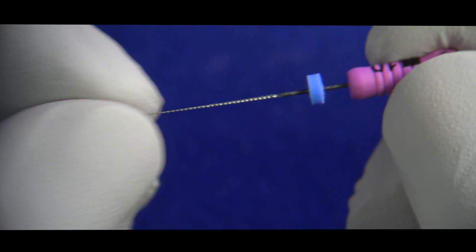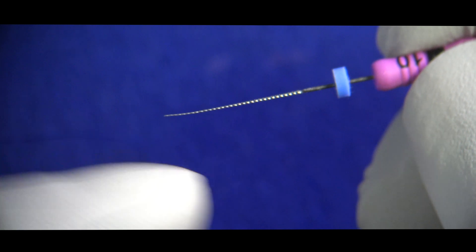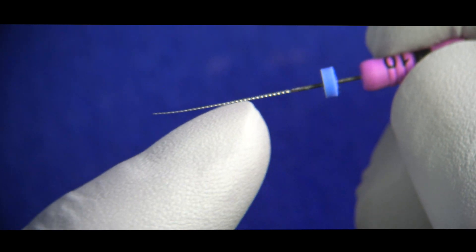Since we're only holding these files at the handle, we really can't discern the exact area of contact, and we tend to assume that the file is being held up at the tip rather than the sides. This is why a crown-down technique makes sense — it first removes some of those coronal impediments that engage the file's taper, and by removing those coronal impediments we allow the hand file's tip to become free in order to navigate apically unimpeded.